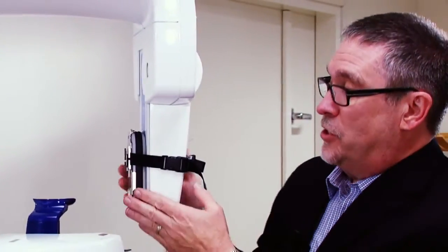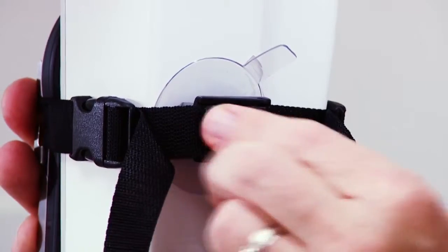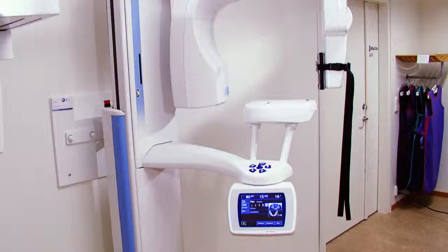If you're concerned about the Piranha being securely positioned, you can draw the adjustable straps even tighter, and then you can snap this lock into place, like so. Now we're ready to measure.